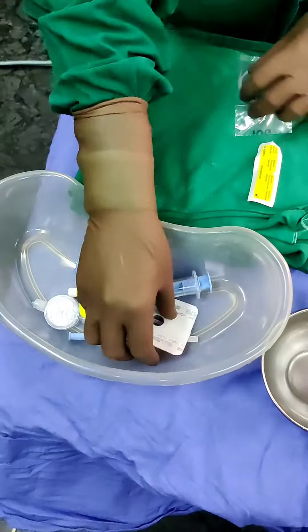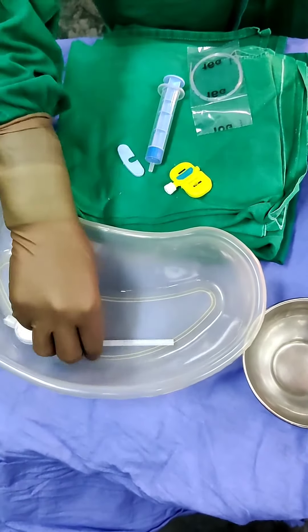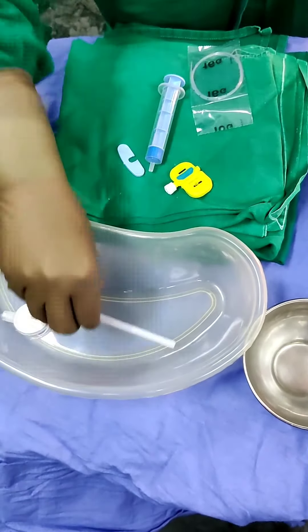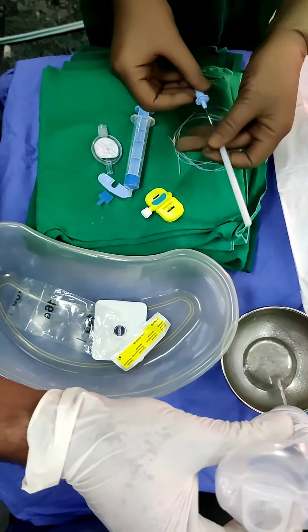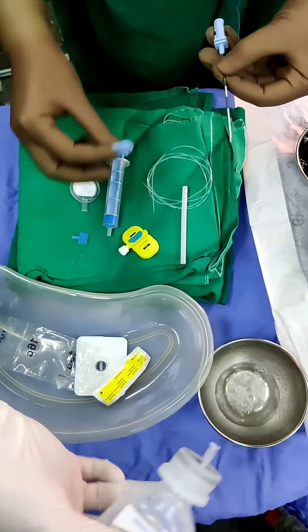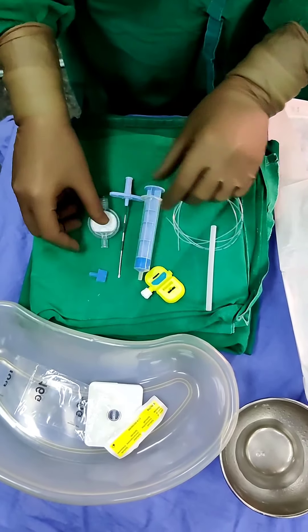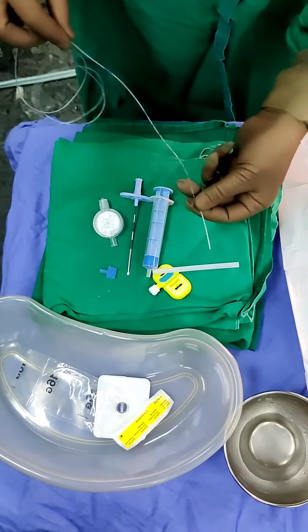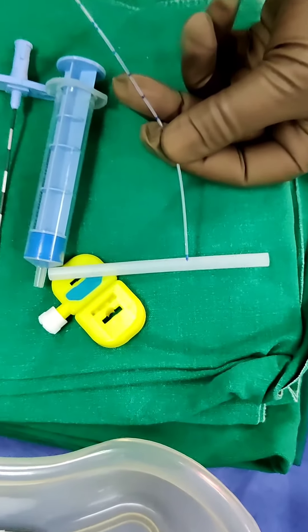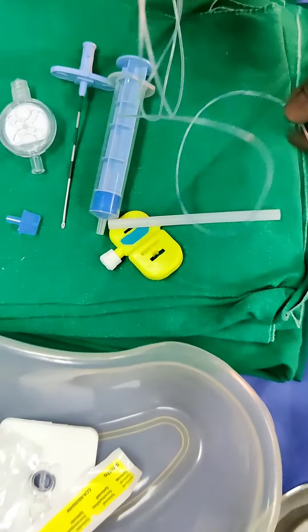Pre-packed sterile epidural sets are available in 16, 18, and 19 gauge Tuohy needles with the respective size catheters. The Tuohy needle is an 8 cm hollow metallic needle with a stylet, the distal end of which is sharp and curved to facilitate smooth passage of the catheter. It has 1 cm markings starting from 3 cm from the tip. The epidural catheter is a long thin plastic tubing with markings starting 5 cm from the tip and at each centimeter up to 20 cm. The tip of the catheter is blunt and firm.